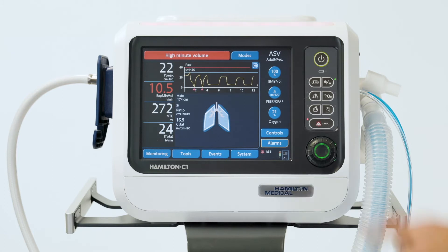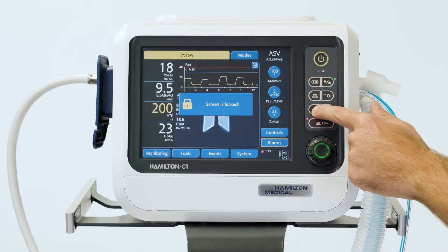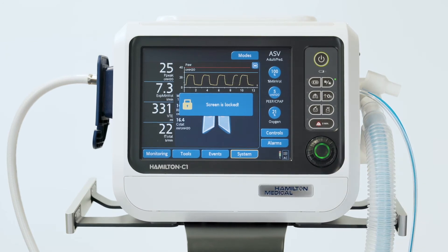Others, like the power standby and print screen keys, or even the P&T knob, are inactive.